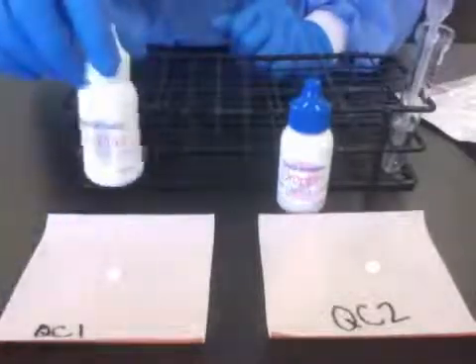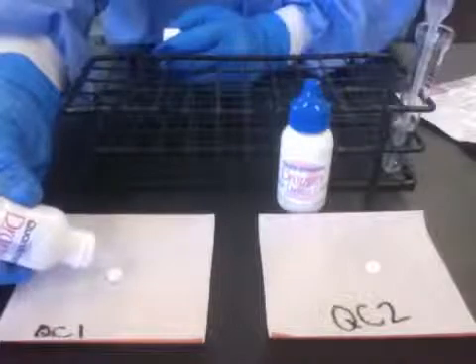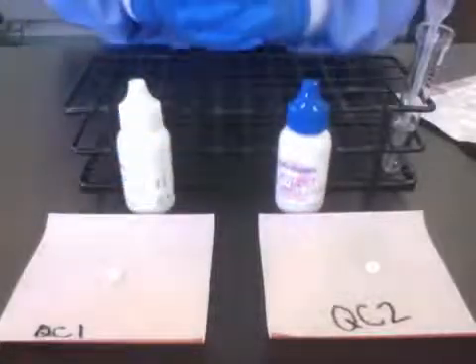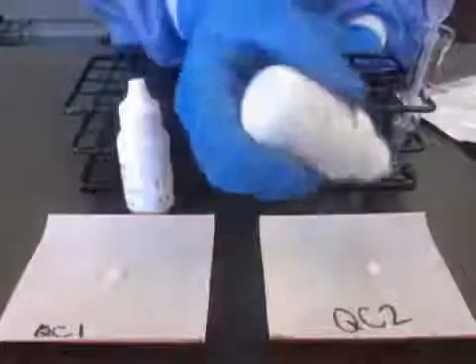Once you have your tablet, you're going to add your specimen. Just add one drop — I'm adding one drop of my QC1 to the top of the tablet, making sure not to touch the tablet with the nozzle of the QC. Then I'm going to add my QC2.